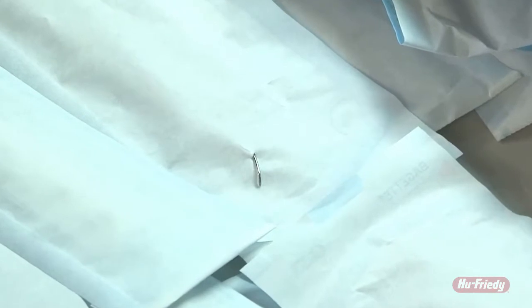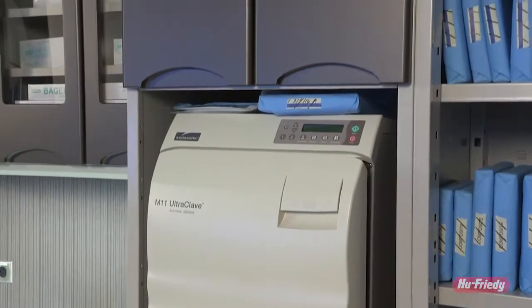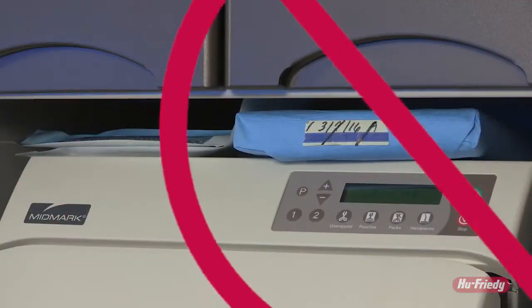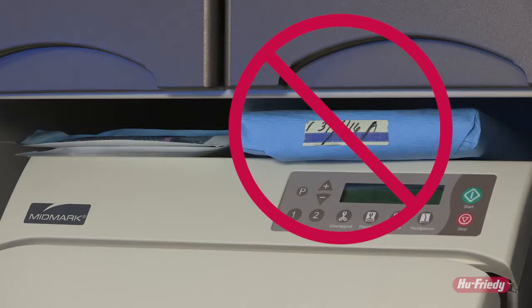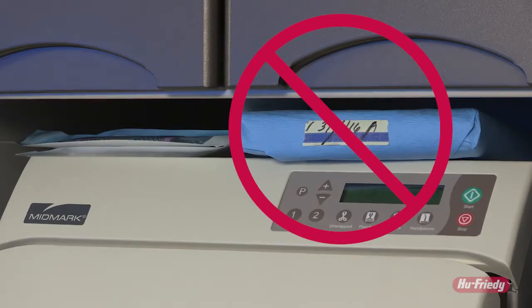If sterility is ever compromised, the contents will need to be cleaned, packaged, and sterilized again. Never store sterile pouches or cassettes above a sterilizer. Steam or moisture from the sterilizer may penetrate the package, resulting in a wicking effect, thus deeming the package no longer sterile.